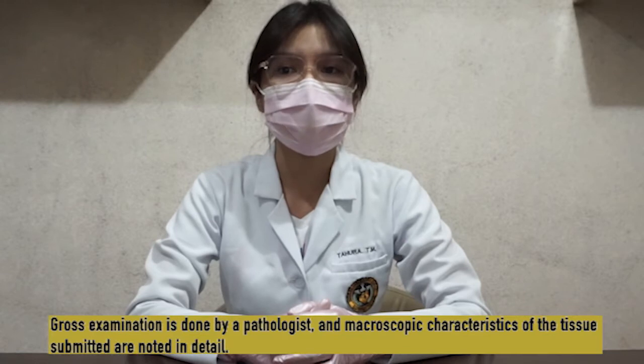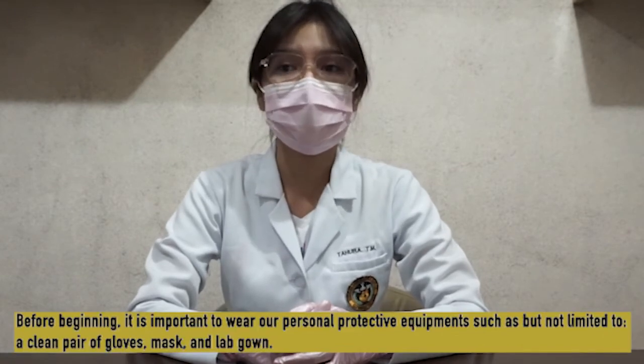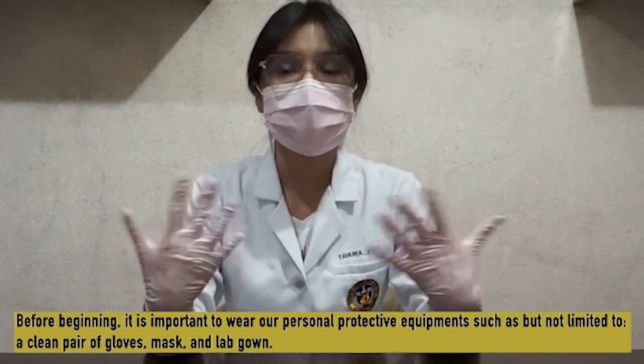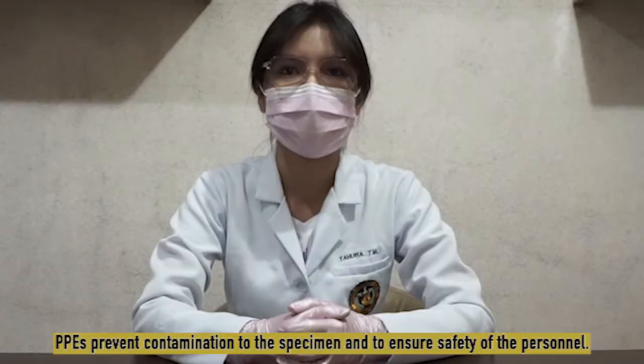Gross examination is done by a pathologist and macroscopic characteristics of the tissue submitted are noted in detail. Before beginning, it is important to wear our personal protective equipment or PPE such as, but not limited to, a clean pair of gloves, mask, and lab gown. This is to prevent contamination to the specimen and to ensure safety of the personnel.